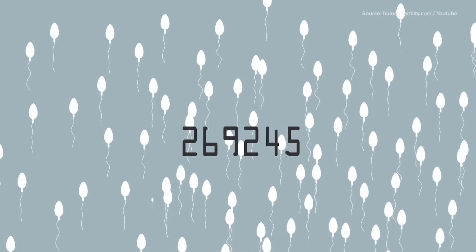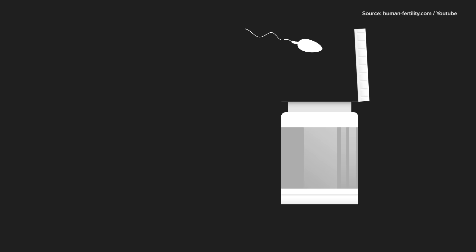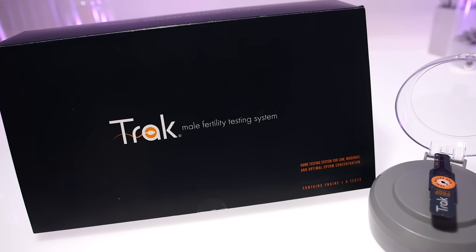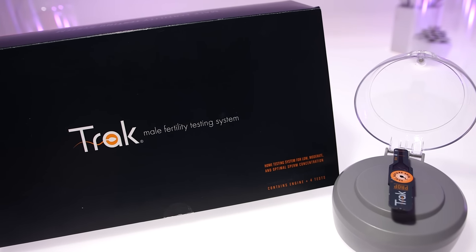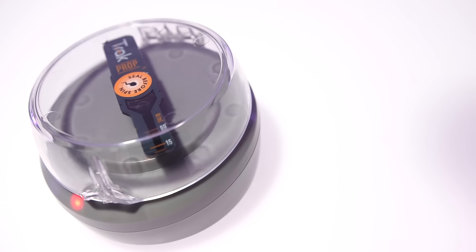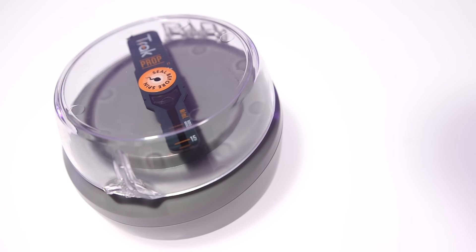When a doctor starts to diagnose a patient, one of the first things to check is sperm production. If a patient already has checked his own levels and can cut that out from the list of problems a doctor has to go through, it can cut up to three months from the process of figuring out what is causing reproductive woes. That time saved can mean more time to focus on other issues.